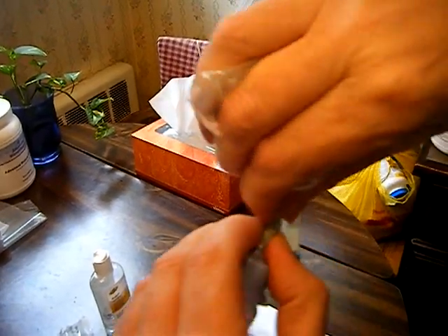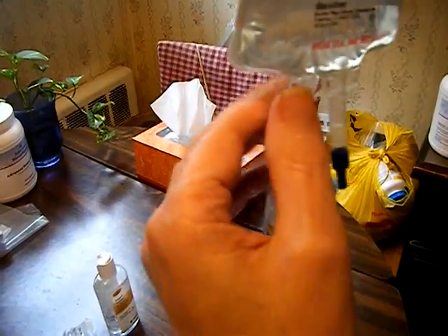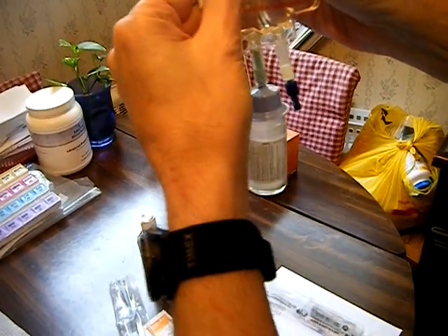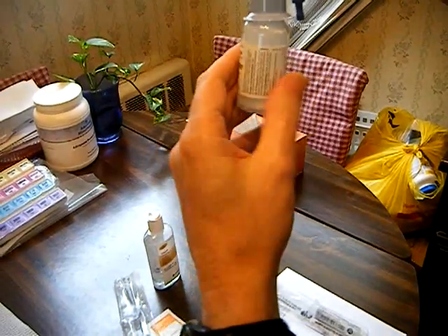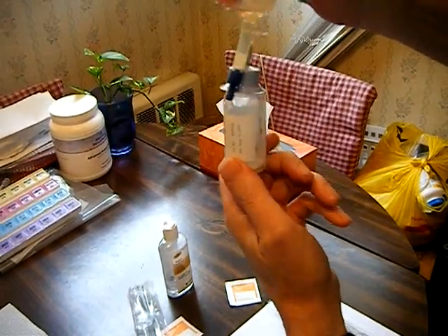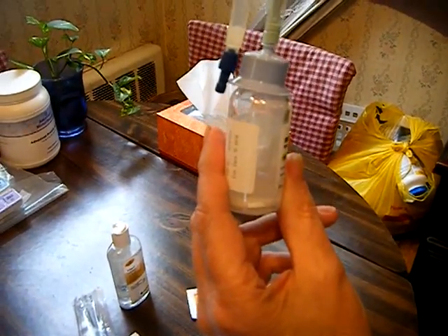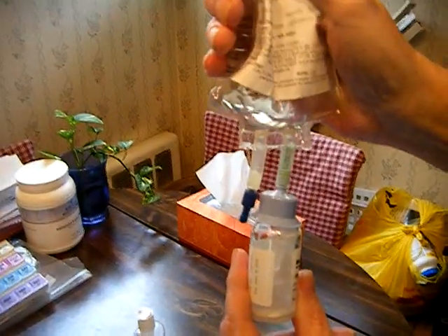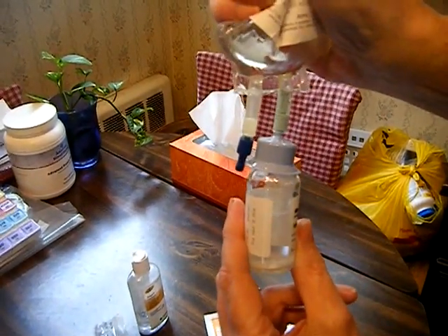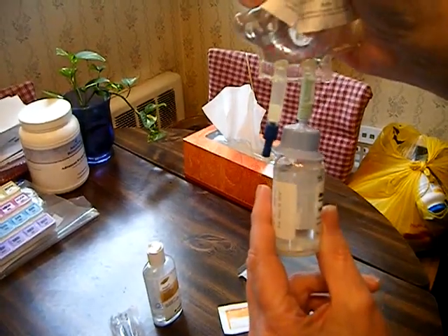I'm going to break it — not break it off, but literally break the interior, so that will open the neck. And I will squeeze the IV solution into this ancillary bottle that's containing the powder, little by little until it fills up. Here's the part where the label isn't blocking the view — you see I'm squishing the saline water into the bottle that contains the medication. Not hard squeezes or anything like that; the bottle will fill up quickly enough by itself.